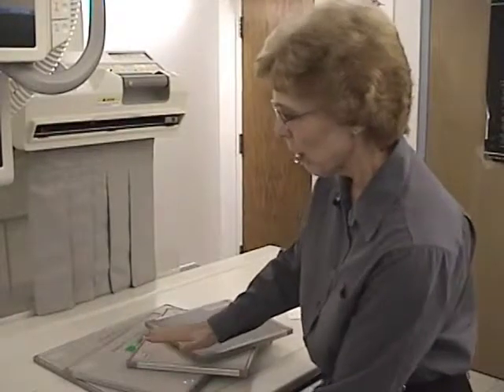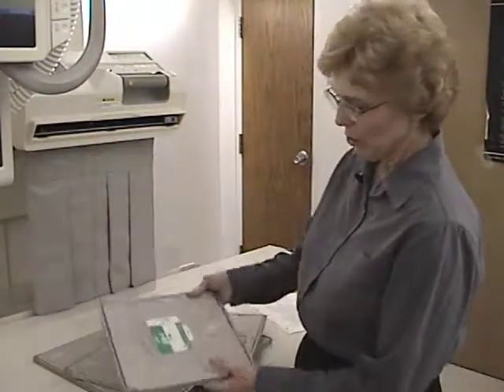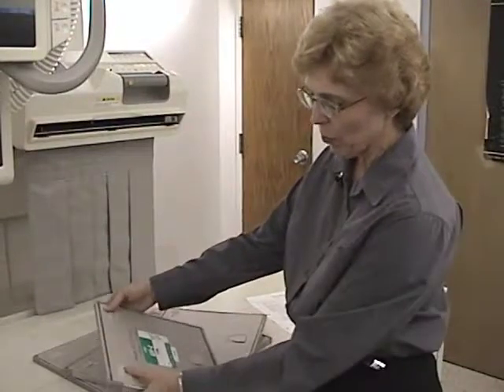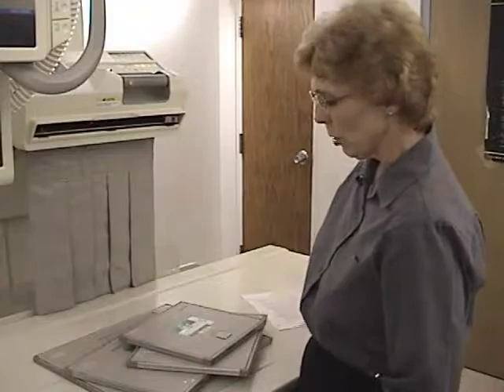Handle the cassettes, feel them. Take them to the dark room, turn the lights off, and unload and load them in the dark so you know how to work your cassettes. Cassettes are all different in terms of how they open and close, so you need to be familiar with the ones you've got in order to do it in the dark.